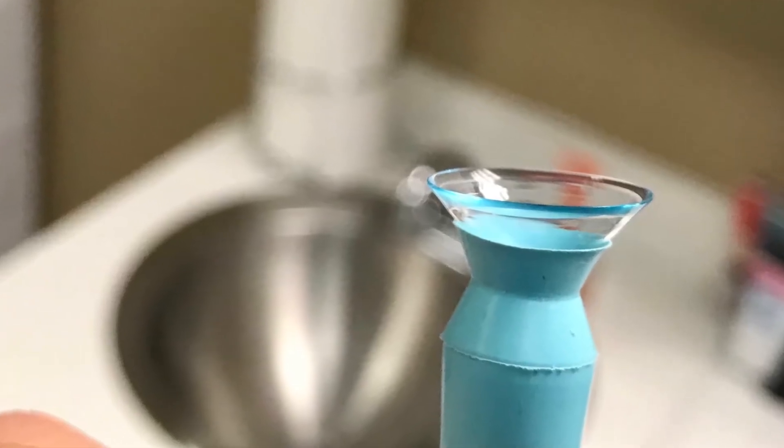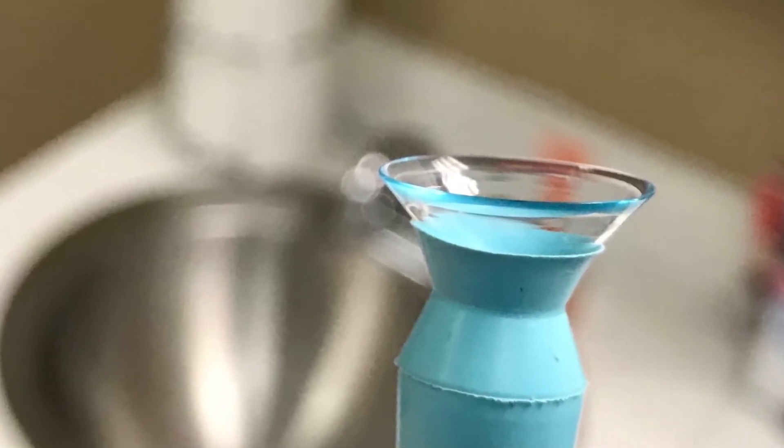When fit with a scleral contact lens, your eye doctor will take a few measurements of your cornea before selecting a lens to put on your eye. Because fitting these lenses is more difficult than standard lenses, it may take a few trips to your eye doctor to get things just right. This is also why being fit with scleral lenses is typically more expensive than other contacts.